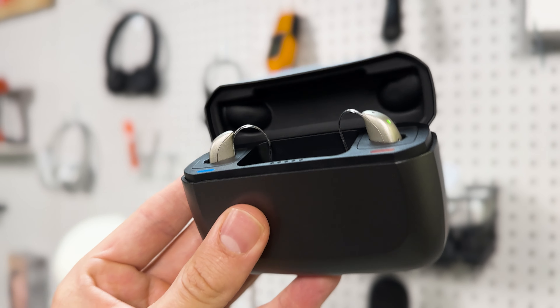The hearing loss level that this product is appropriate for goes from mild all the way up to severe. Because Costco gives you an in-person hearing test inside of their booth, they'll have a good audiogram to match both the volume and the frequency outputs of your devices to match your particular hearing loss level. On the battery front, Jabra Pro hearing aids carry about 24 to 30 hours depending on how much you stream and which size you choose. You're going to get more than a day's worth of charge on every single recharge, so if you drop your hearing aids into your charger every night and pull them out the next morning, you'll be absolutely fine.